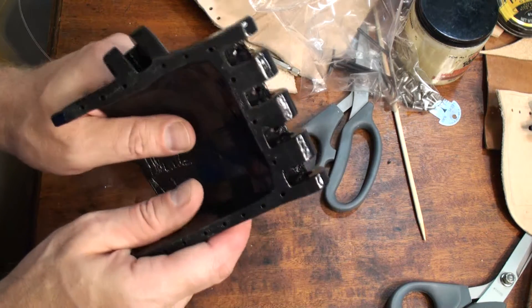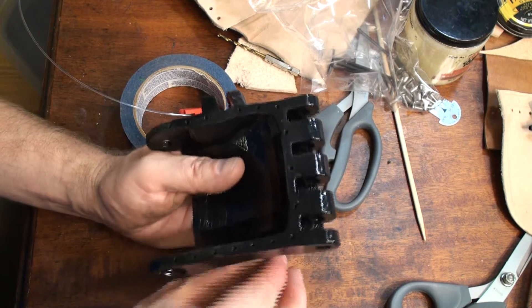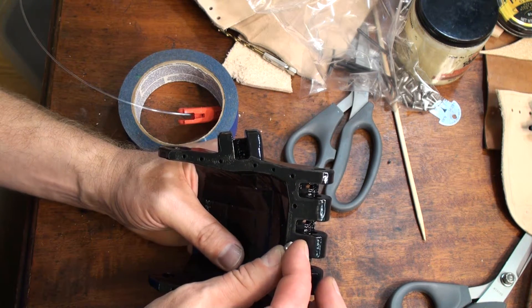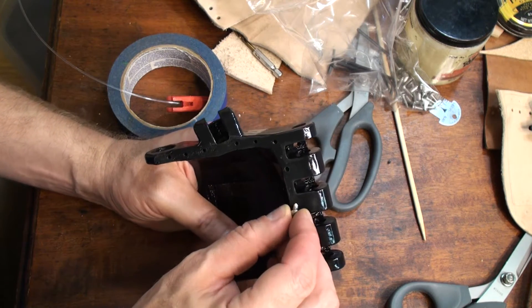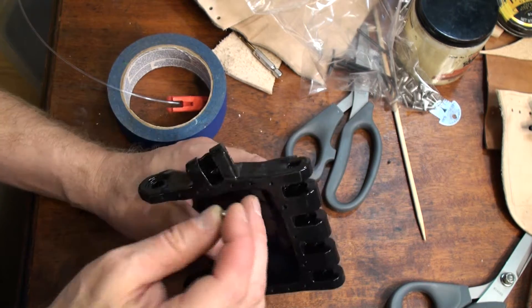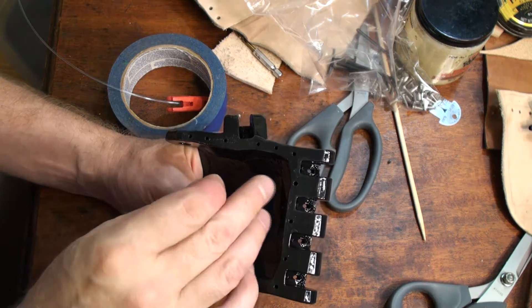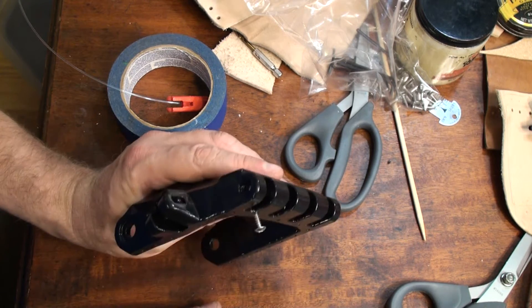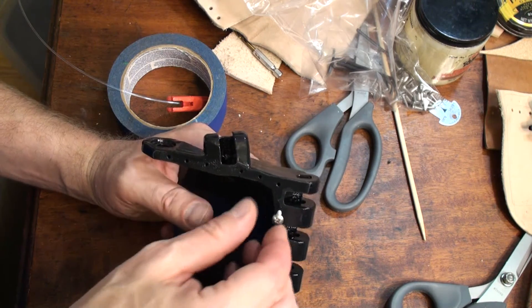I've got a palm here that is 155%, and for the large size kits the palm leather screws are number six screws. If I put them in here it might work, but there's also a chance that it will destroy the plastic. So the way to solve this is you have to ream the holes — the holes need to be made wider so that the screw will bite in well but not destroy the surrounding plastic.